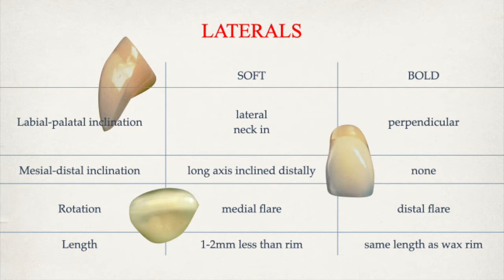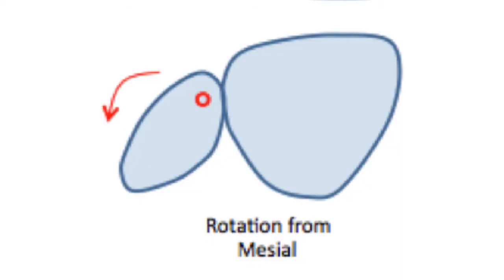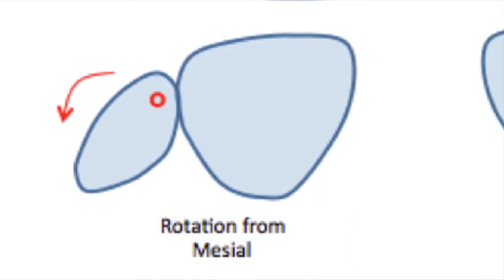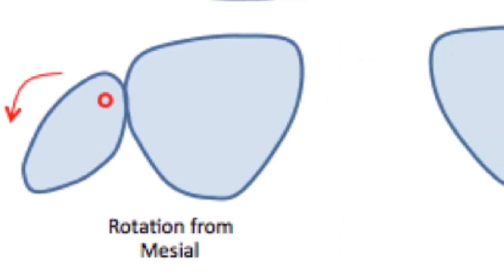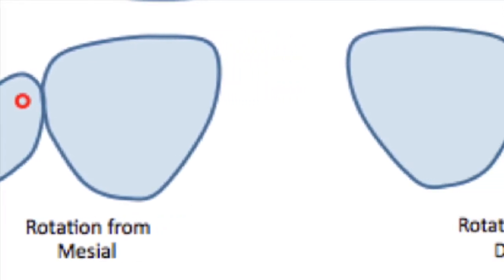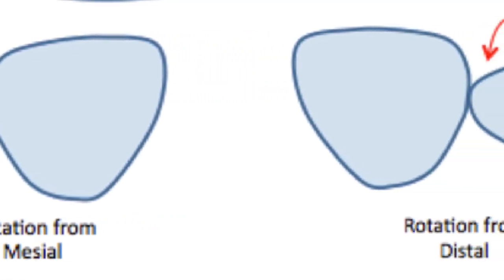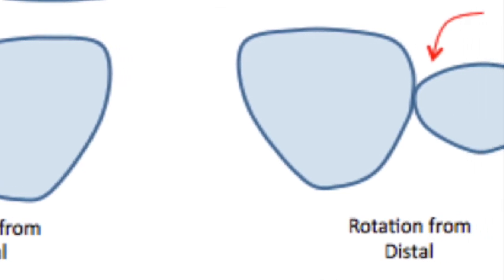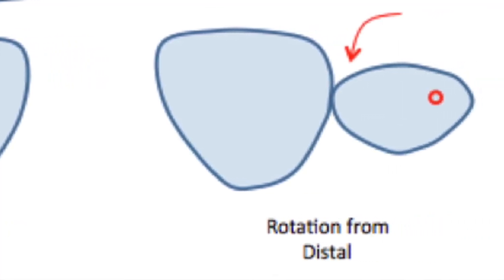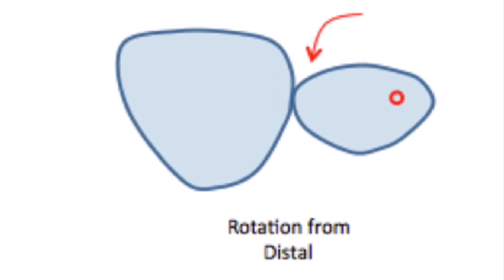You could make the lateral tooth setup differently depending on what the patient is looking for. Looking at the rotation in more detail: for the soft setup, this is the medial rotation for the lateral — bring the medial a little bit more facially. For the bold setup, moving the rotation from the distal.